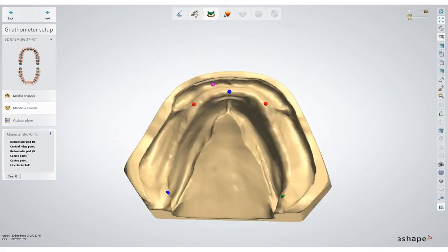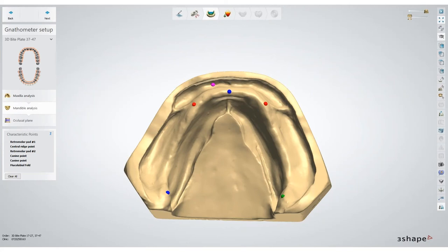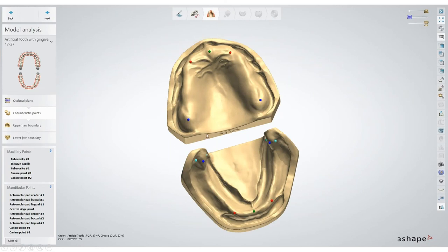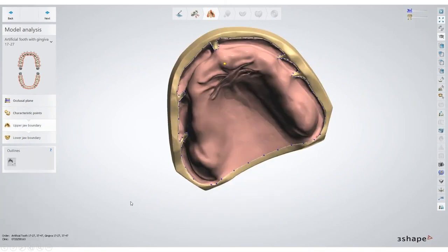Tuberosities are there for a reason too — they tell you not to set teeth past a certain point. On the lower, the buccal frena indicate first premolar position. Retromolar pads generate your static lines and lines of correction, and show how far back you can set up the occlusion. All of this goes back to Professor Gerber's studies on model analysis. Once you have all these things marked and move forward, it will tell you to mark the outline for the denture. You can be very precise or — as I've been doing lately — just go all the way through and adjust after printing.